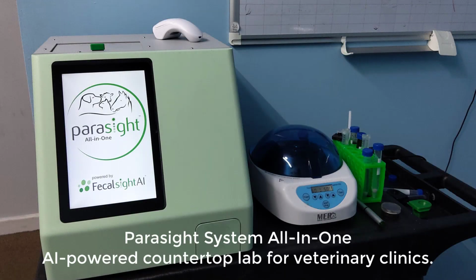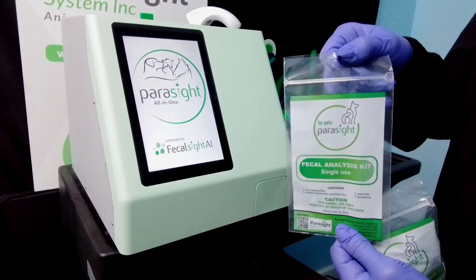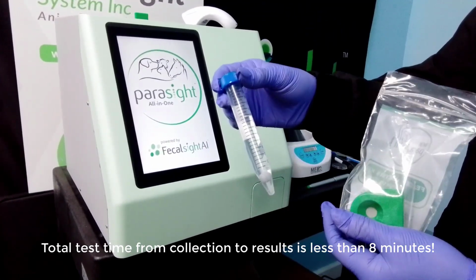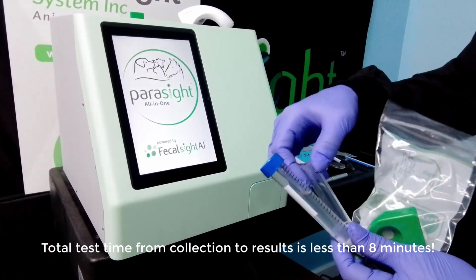The Parasight System All-in-One is an AI-powered countertop lab for your clinic. This tutorial provides an overview of how to perform a fecal using the All-in-One. To begin, you will need a single-use fecal analysis kit. The fecal test kit contains a pre-filled centrifuge vial, a sample filter cylinder, and a single-use egg chamber.